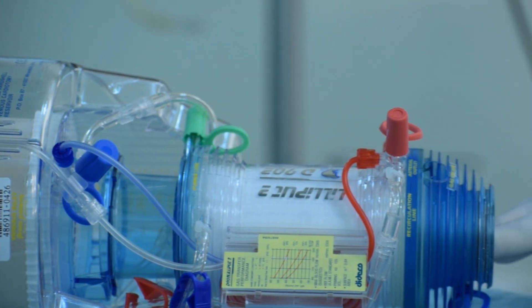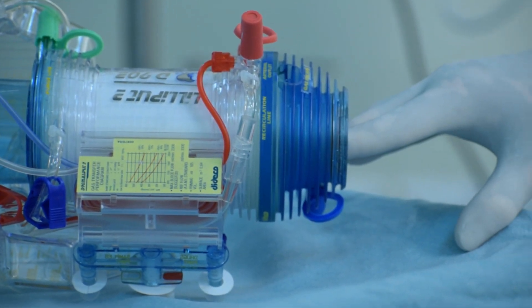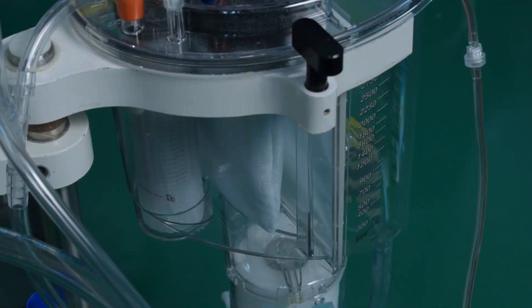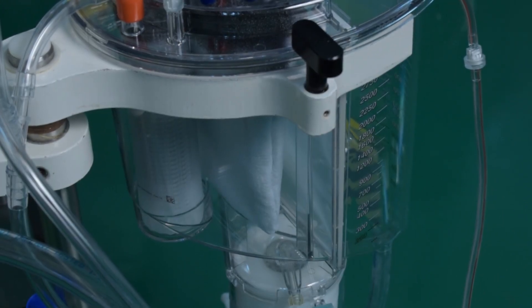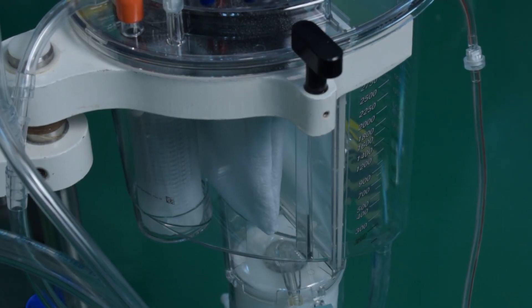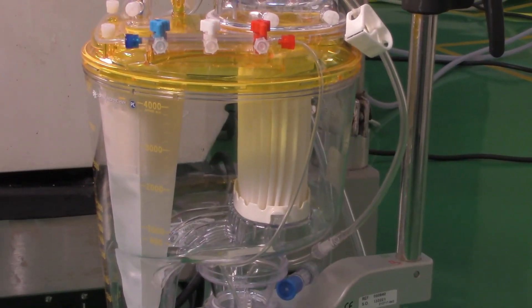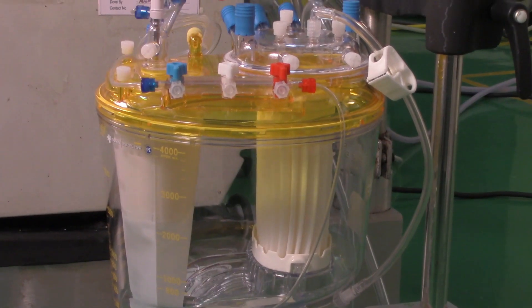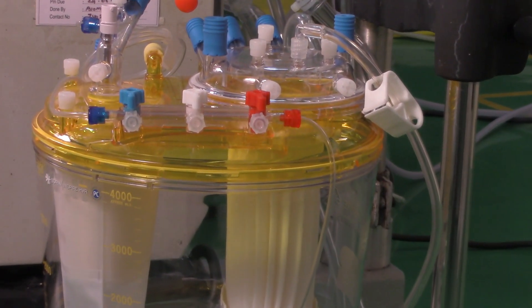Problems with the open system or hard shell reservoir include that circulating blood is exposed to a larger and more complex surface containing defoaming sponges and anti-foam agents. The use of cardiotomy suction — especially uncontrolled cardiotomy — results in a significant increase in thrombi, neutrophil and platelet activation, as well as release of unwanted cytokines.